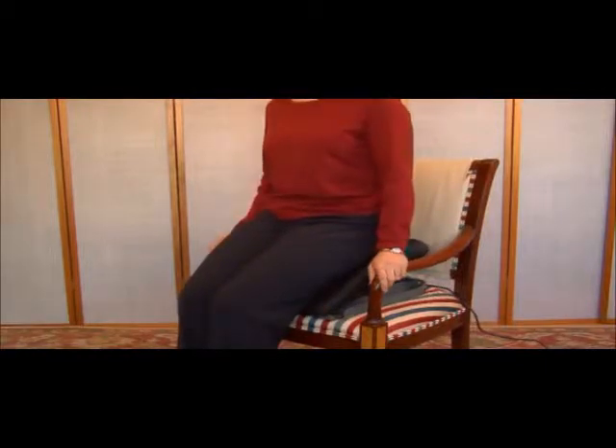If you are on a sofa, push the power lever down and place one hand firmly on the armrest and your other hand on your leg to help stabilize your body. Since the PowerSeat will move up and down, always use a stable armchair or sofa with an armrest that you can hold onto for firm support.